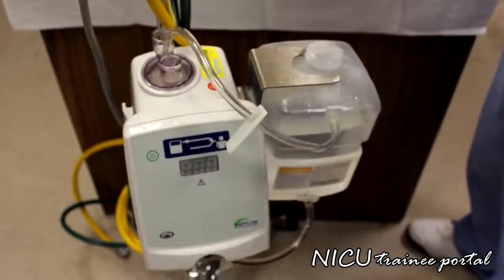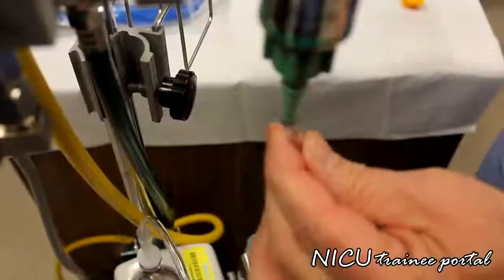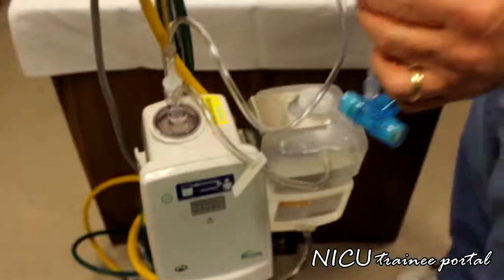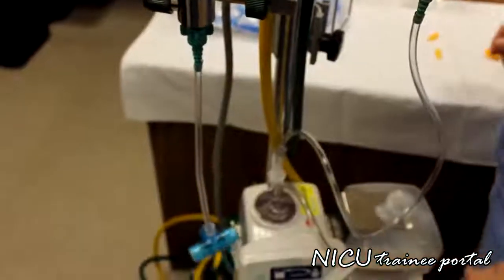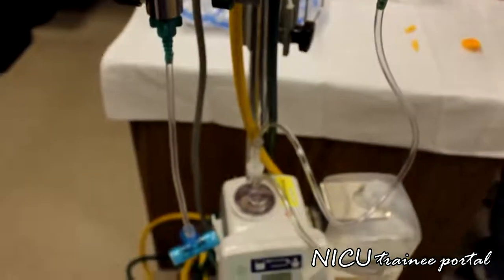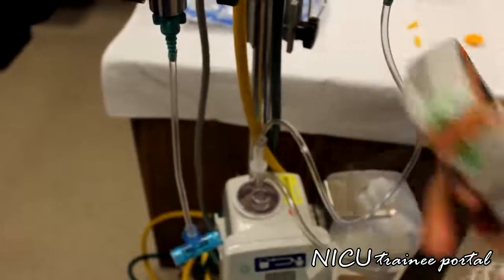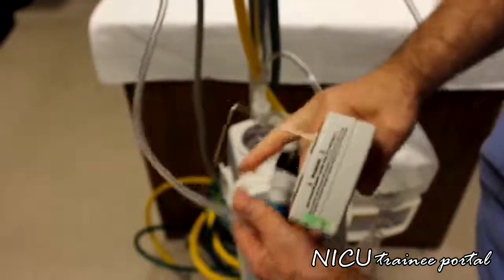Next step is, it doesn't matter which one, you place it in here and then you hook it to one of the flow meters. Push and wiggle. And then you put in the analyzer connection, same thing, push and pull. And this is your analyzer. You place the probe into the opening. There's only one opening, it only fits one way, so just like that.